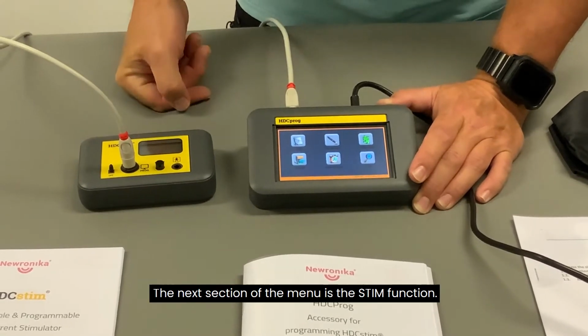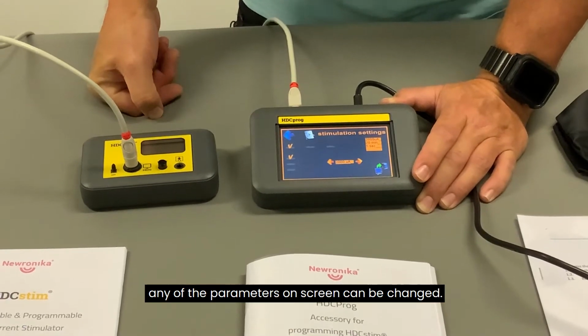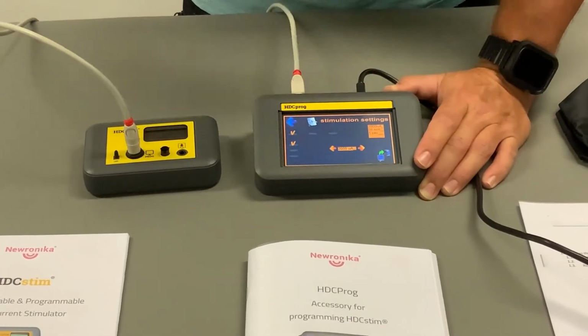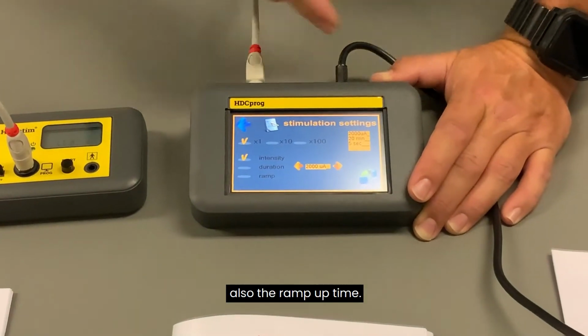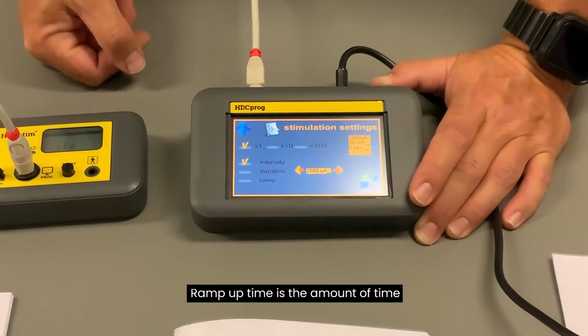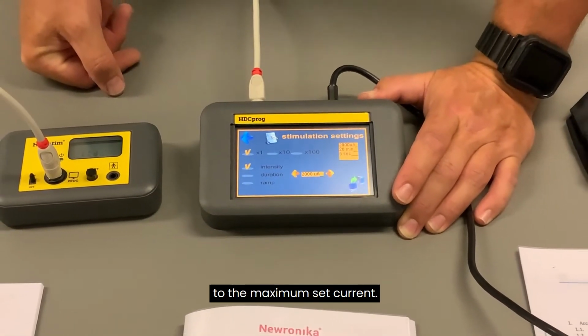The next section of the menu is the stim function. In this menu, any of the parameters on screen can be changed, such as the current, the amount of time the treatment occurs, and also the ramp-up time. Ramp-up time is the amount of time it takes to get from 0 amps to the maximum set current.